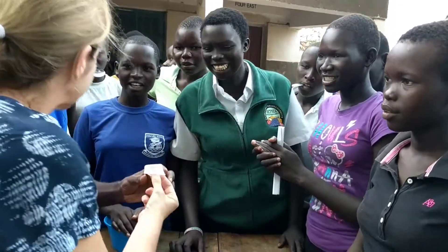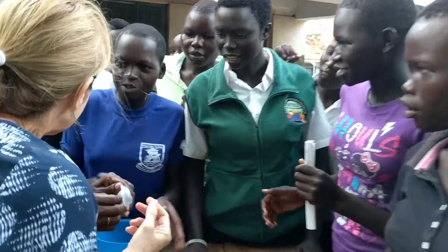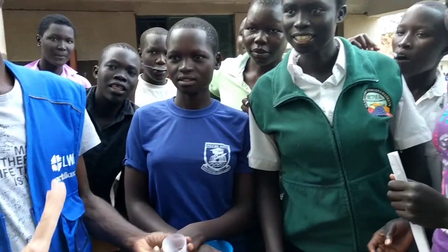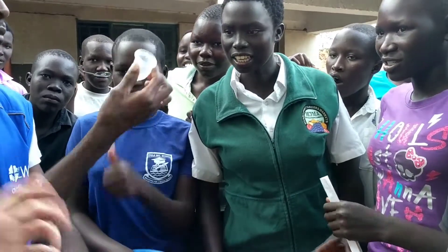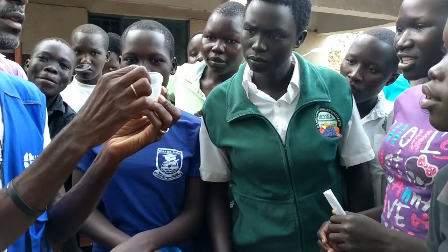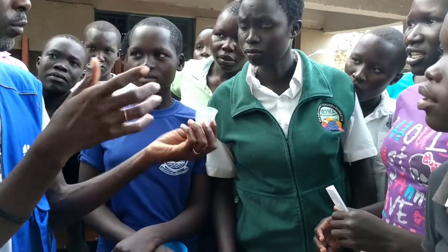It is not hard to move — you mean your entire body? Yes. You don't feel it at all. You can dance. As you're inserting, you can do whatever you do in a normal way. This one here is hard because it's for demonstration purposes.